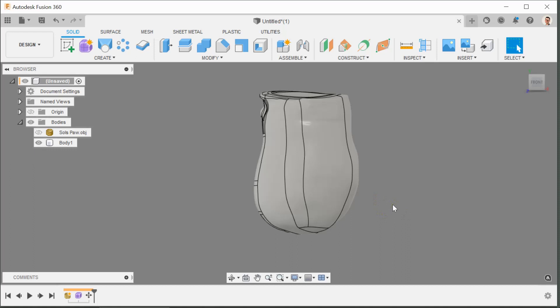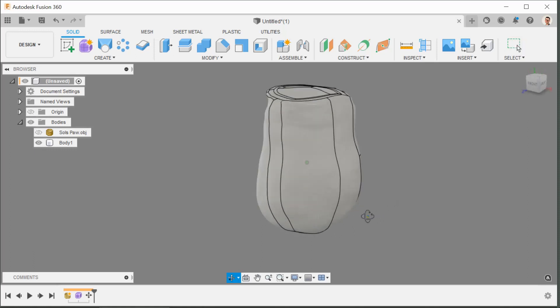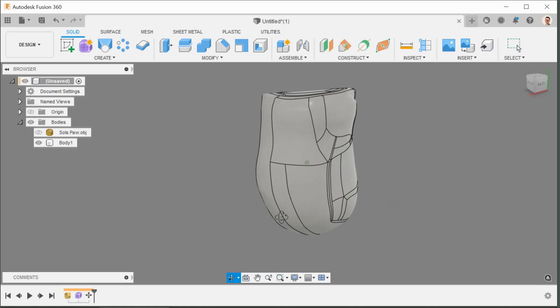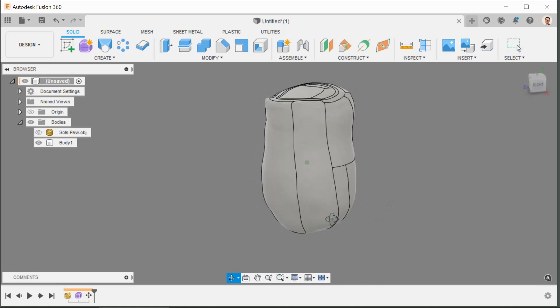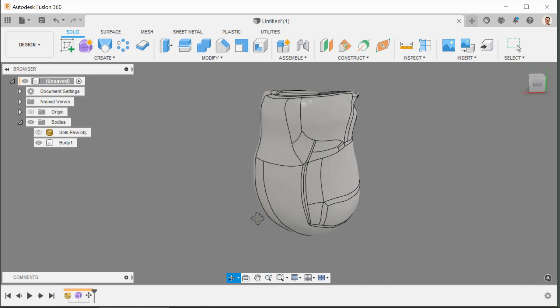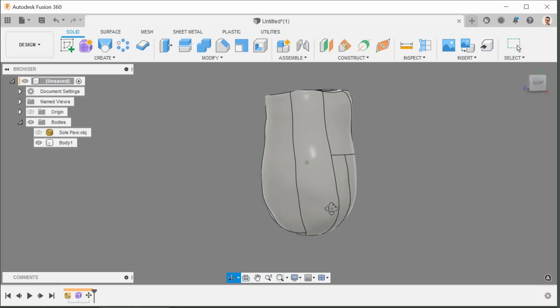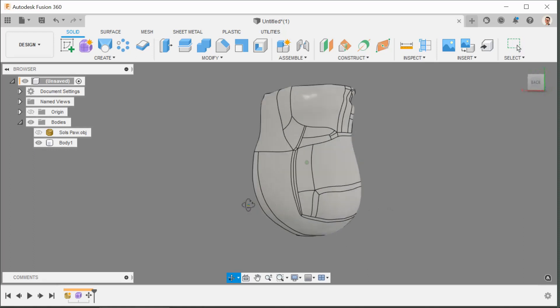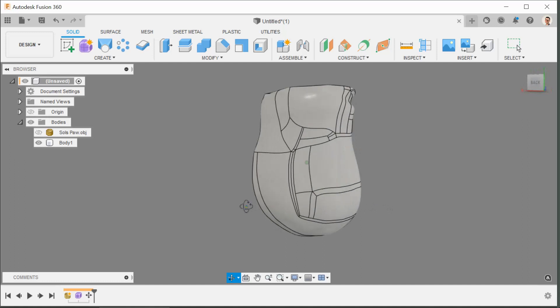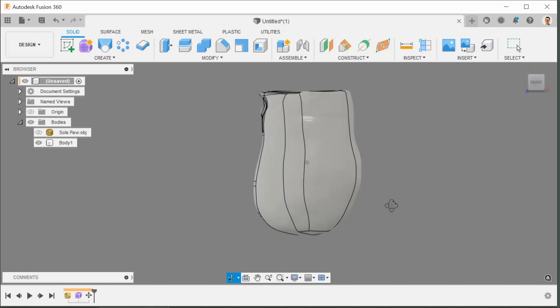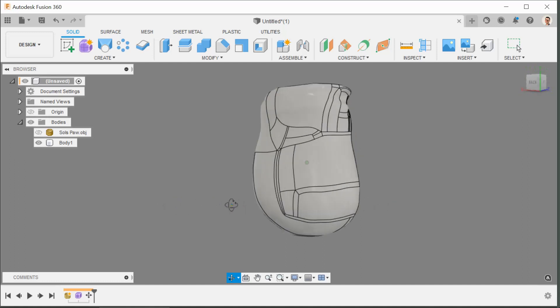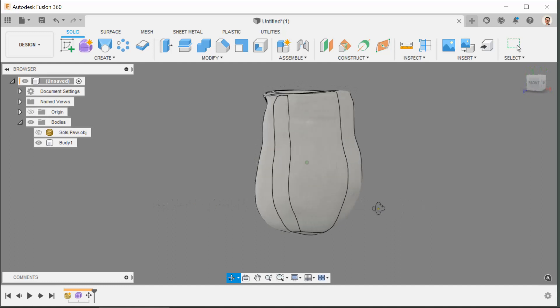When you're bringing in something that doesn't have any discernible features, it's sometimes really difficult. But I'm guessing if you're like me then you're a dad or a relative who's making an arm for somebody close to you and you're going to know the geometry of their arm really really well. Or you could be a practicing CPO and of course I'm teaching my grandmother to suck eggs.